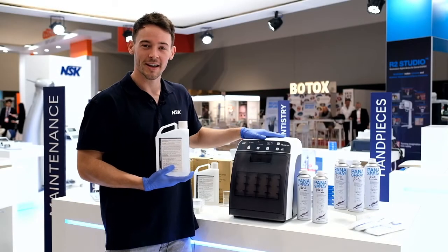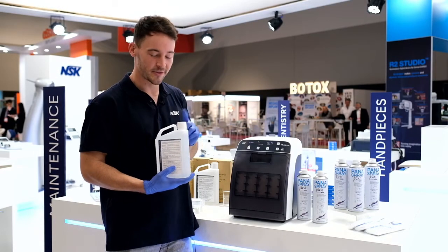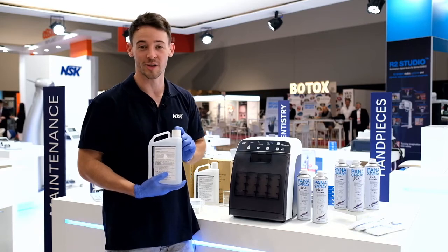If you have just bought yourself an iCare, the first thing you will need to do is fill it with maintenance oil before the very first use.